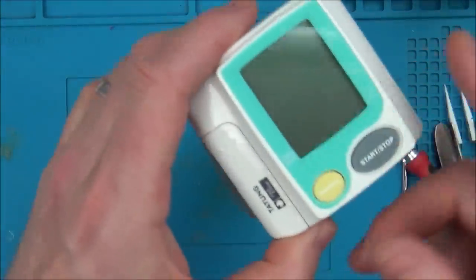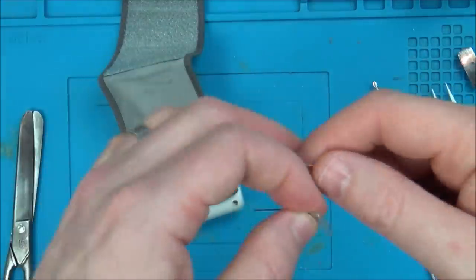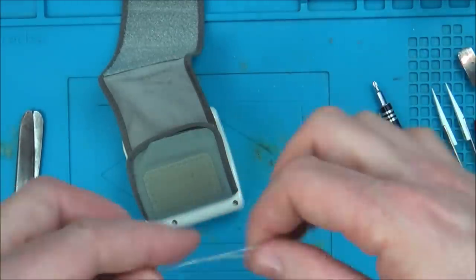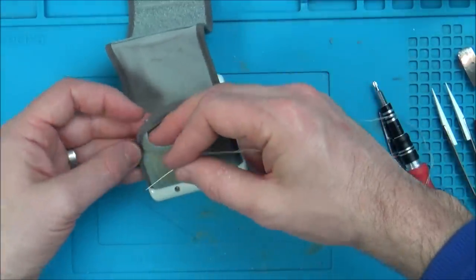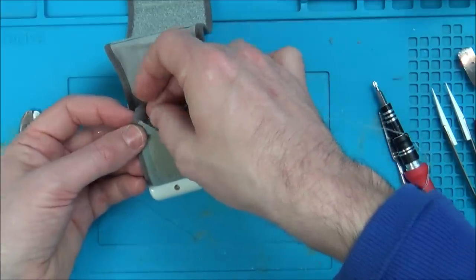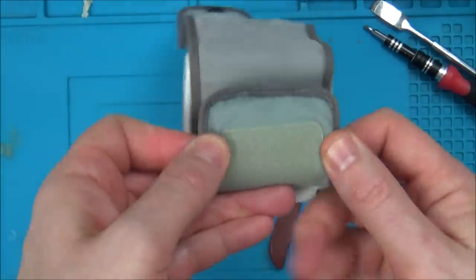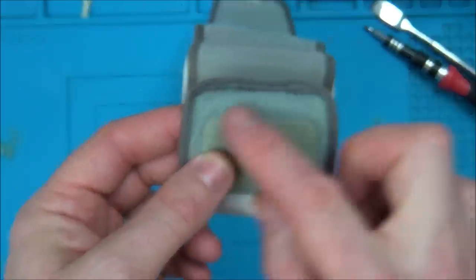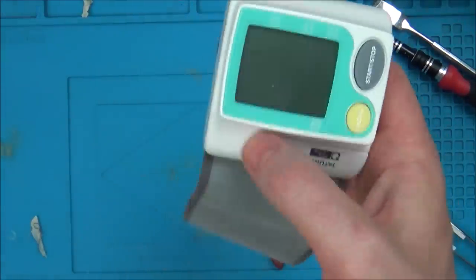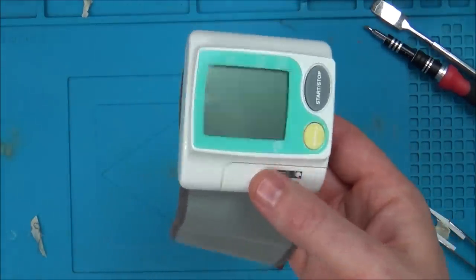Let's get this stitched up and then we'll get another reading at the end of the video. So I've doubled up the thread for strength, and down at the bottom I've doubled and tripled it and tied a knot, so there's going to be a nice knot hidden on the inside. I think I'll start on this side and put the knot on the inside. I'm just going to try to go through the same holes as before. That's it all stitched up. Now, it doesn't look good, but it is strong as far as the stitching is concerned - it just doesn't look professional whatsoever. But it's going to do the job of holding it together, which is the main thing.